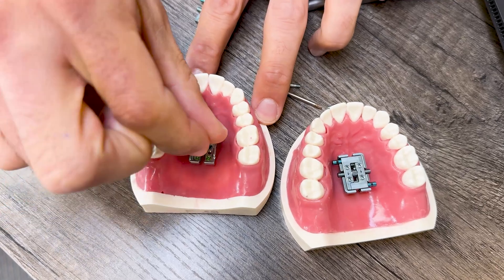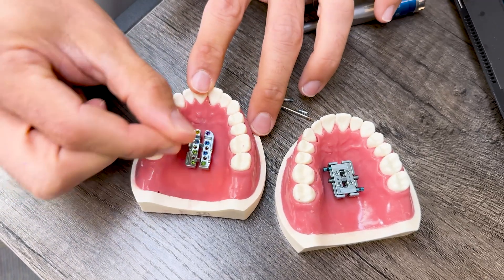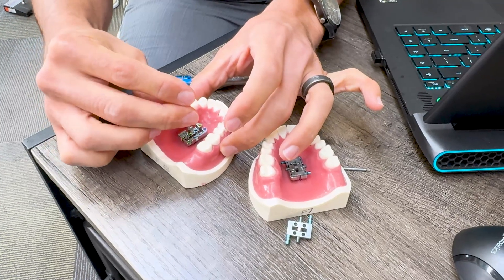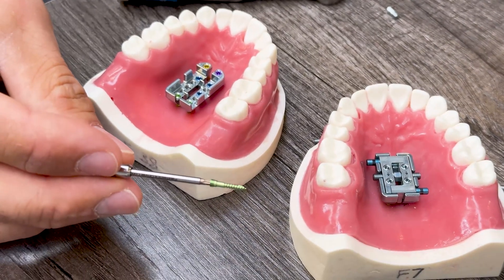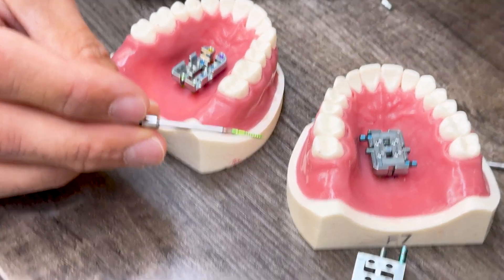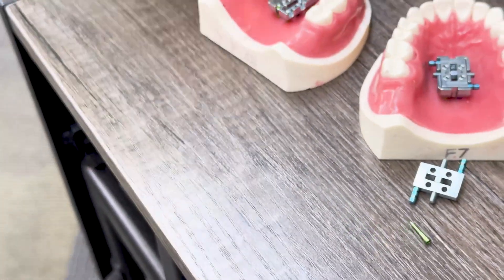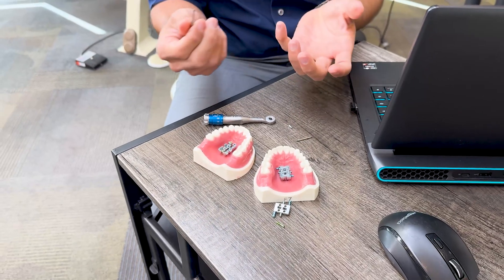You're going through the guide to place these TADs, so you won't actually see it like this when delivering the expander. I'll start to remove one of these TADs so you can see how those come out — you would always have the guide in when putting them in and out on a patient. Regarding the tooling that comes with the FME: it's very precise and everything's been the highest quality. Innovations have happened even between the version of this typodont and the ones placed in the mouth. With the current version, to simplify installation, there used to be two different drivers — one for the retaining screws and one for the TADs — but now it's the same driver for both.